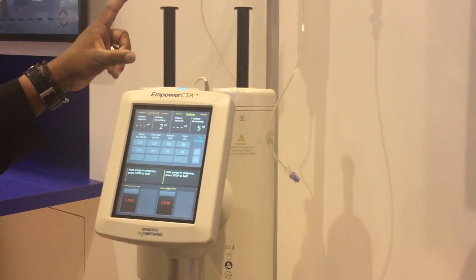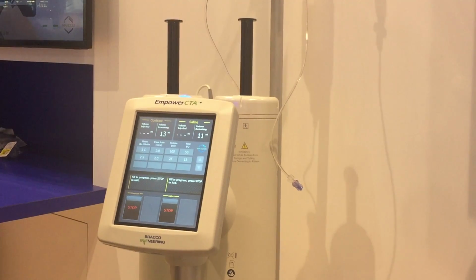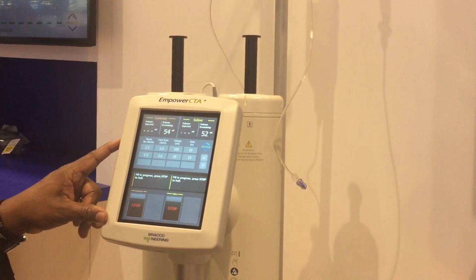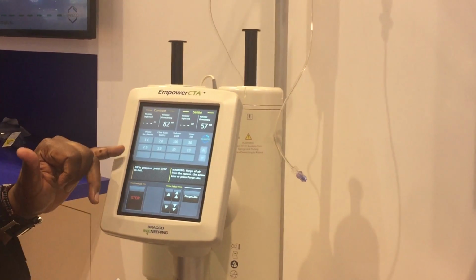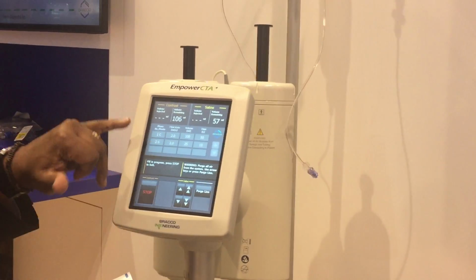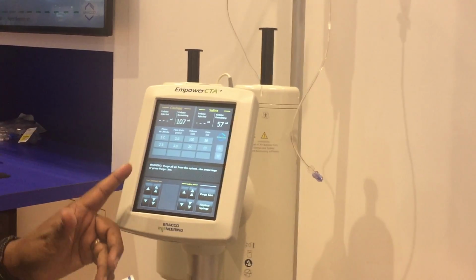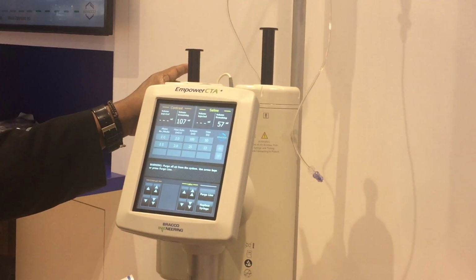If you see the pistons come up and down, that's auto purge, getting all of the air out of the top of the syringes and eliminating any air gaps. My protocol calls for 100 mL, so I'm going to get 7 extra over on the contrast side, 25 extra over on the saline side, which will allow me to do a test patency of the veins. So I fill my syringes.